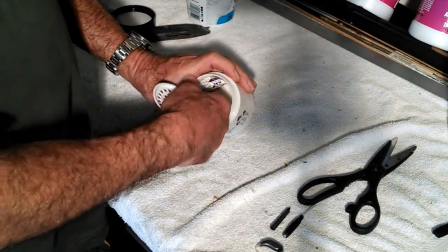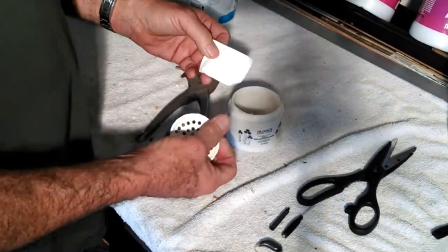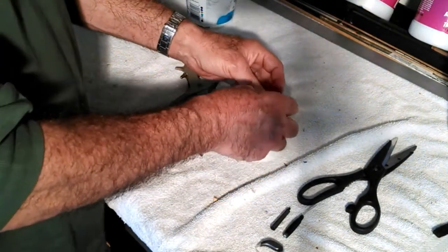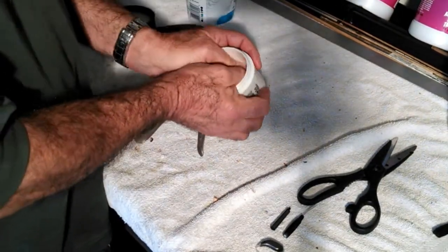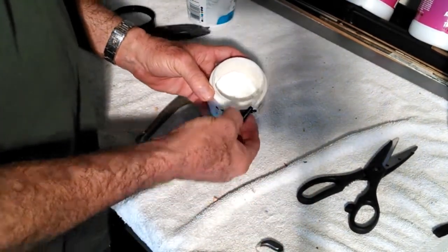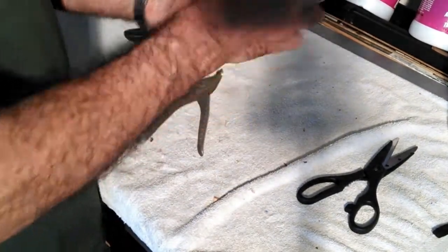If you wanted to, you could put some dates on these when you put them in service, and then you can throw them out and put some new ones in once in a while when you get new ones. You could probably hold five, six, or even ten of those desiccant packs. Put your barrier in like that, and then your hearing aids, seal it up overnight.